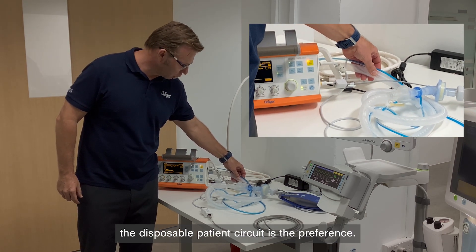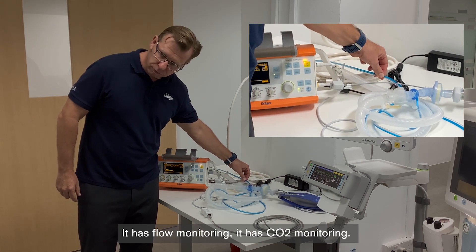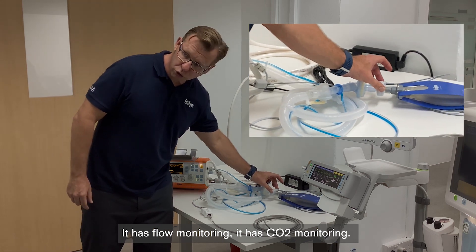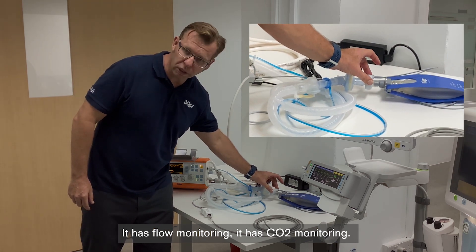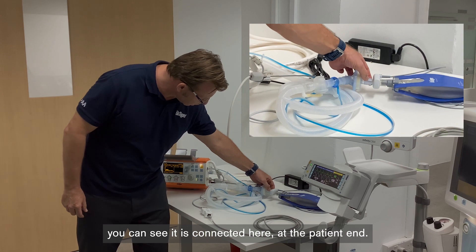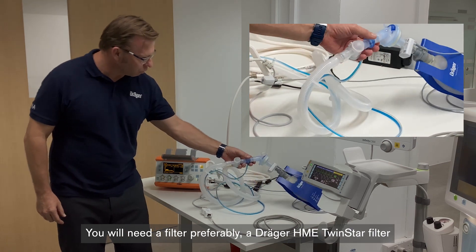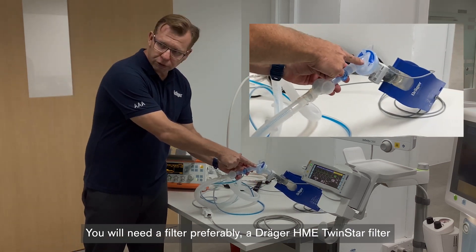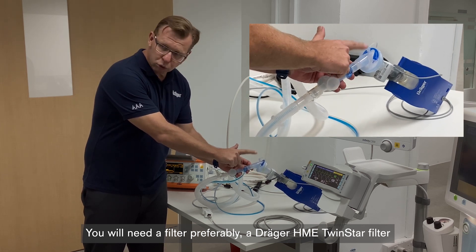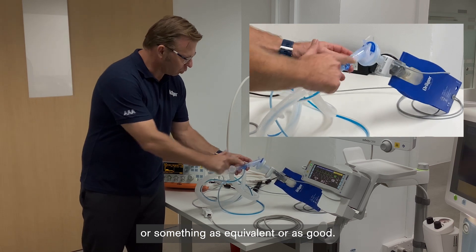You will also need the Oxilog patient circuit. A disposable patient circuit is the preference. It has flow monitoring and CO2 monitoring — if you have that available, it should be connected. You'll see it's connected here at the patient end. You will need a filter, preferably a Draeger HME TwinStar filter or something of equivalent quality.